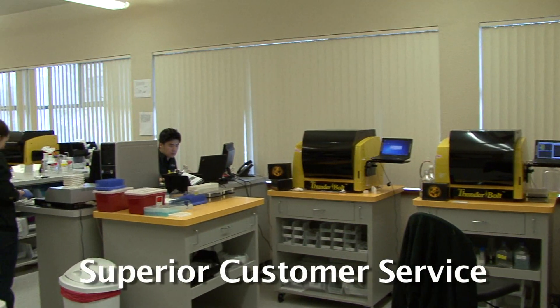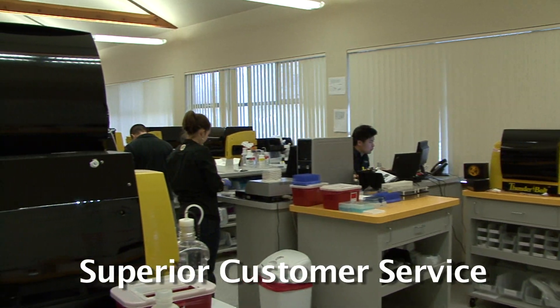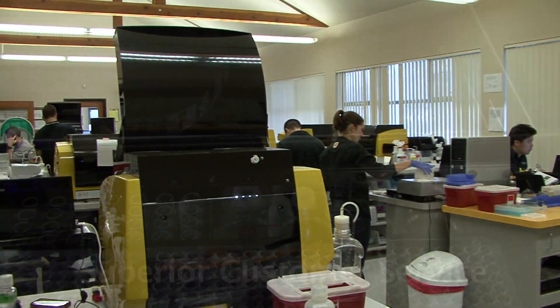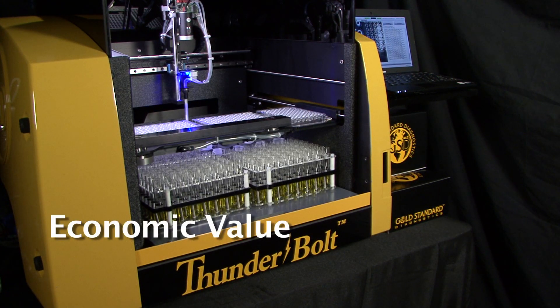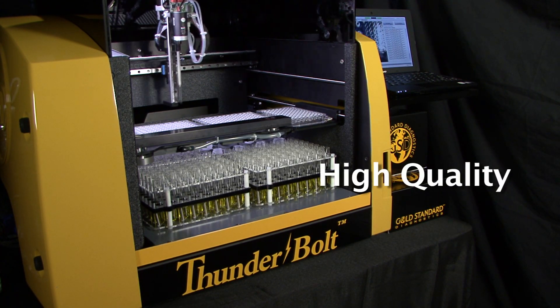Our superior customer service empowers your lab to operate with excellence and efficiency. Regardless of testing volume, the Thunderbolt delivers exceptional economic value while maintaining high quality.